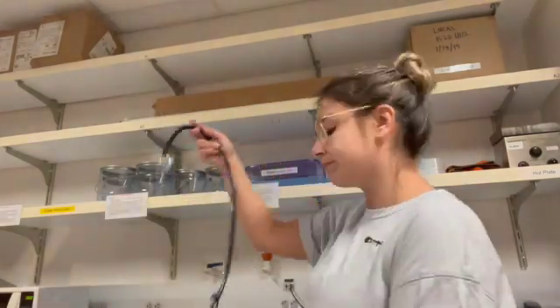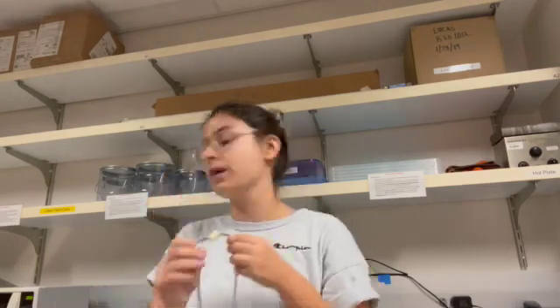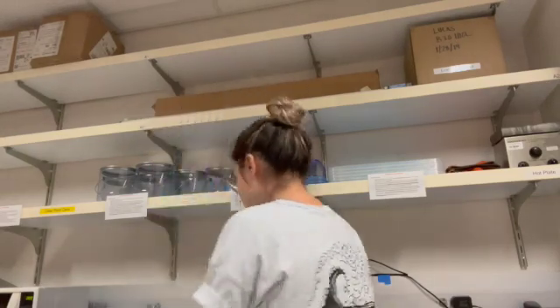Exercise 1 is going to be focusing on heartbeat and flow. Students will be learning how the two sounds make one heartbeat, the lub-dub situation. For the stethoscopes, I believe it recommends placing it on the left side of your heart, or the 5th rib is another recommended place. And so you will take your heartbeat for 30 seconds and you will count your heartbeat. Okay, perfect. That is exercise 1.